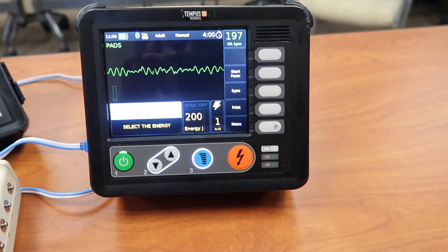After pressing the green on button, it takes about two and a half seconds to turn on the whole defibrillator. And the moment that it kicks on, it is ready to defibrillate. There are no accidental shocks from bumping it or accidentally pressing on the screen — it's not touch screen. It's all operated by the buttons.